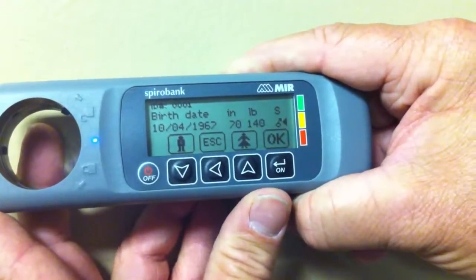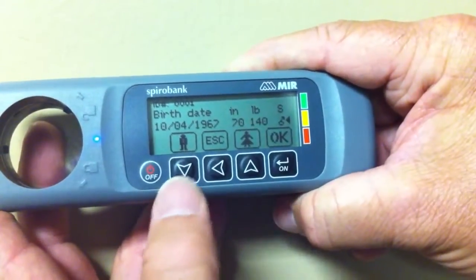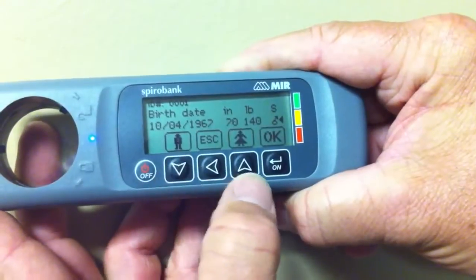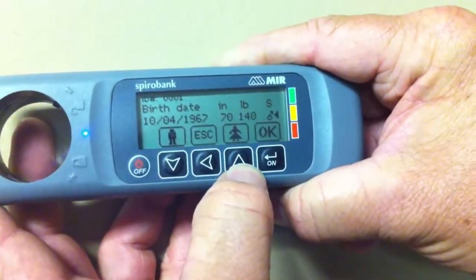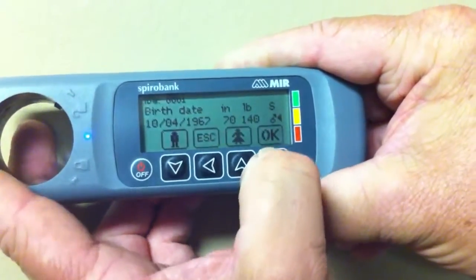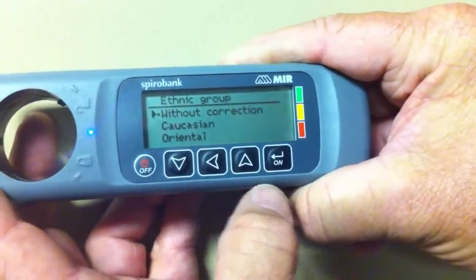Enter the sex of the patient. Use the down key for male, or the up key for female, then press the okay button.